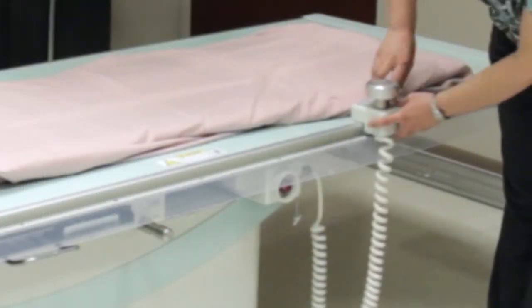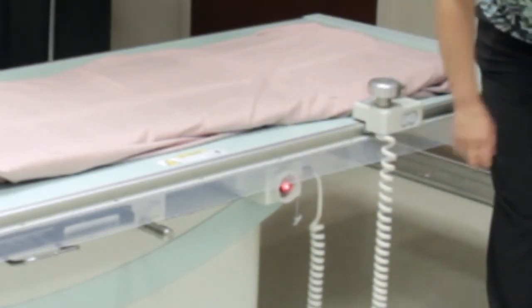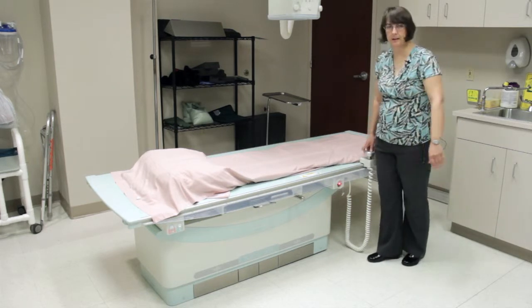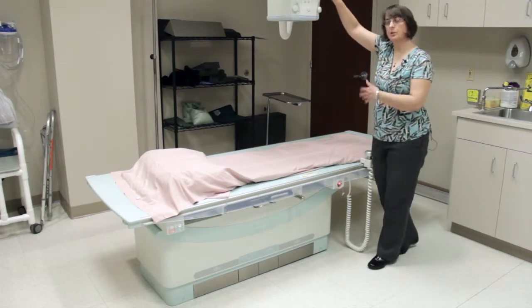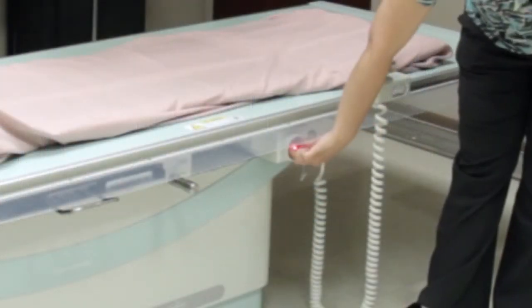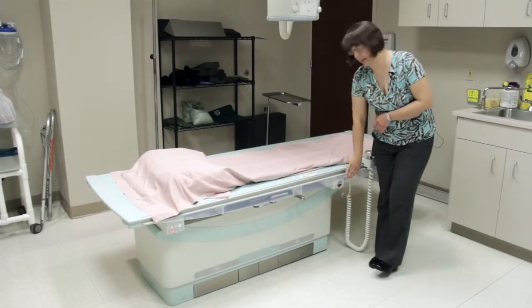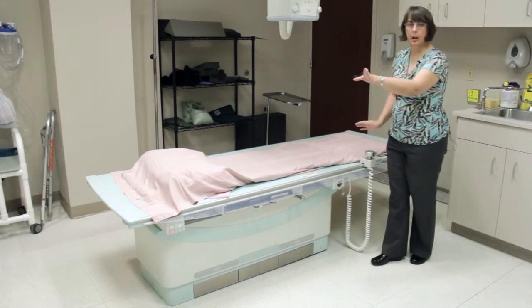There's also an important safety lock under here that's going to lock all table travel — handy if you've got parents out here holding a patient and you're worried someone might accidentally bump the table. With this lock on, you can still position the tube and still make your exposures, but you're locked on all table movement. To release, just twist and the light will go off. There's a similar button on the wall stand, and whichever button is activated is the one you'll need to unlock to release, because both lock simultaneously.